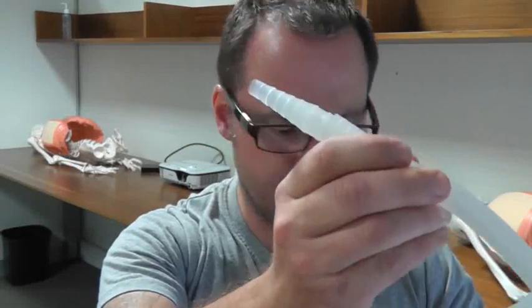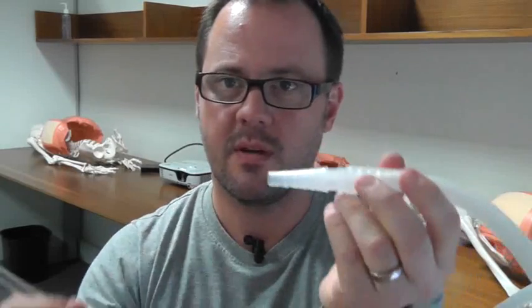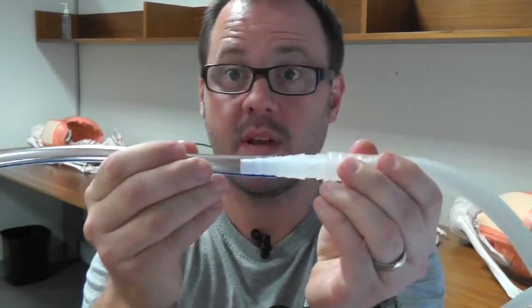It can save you some trouble and some time. This is so you can learn how to attach your underwater seal drain tubing to the end of your chest tube, safely and securely.